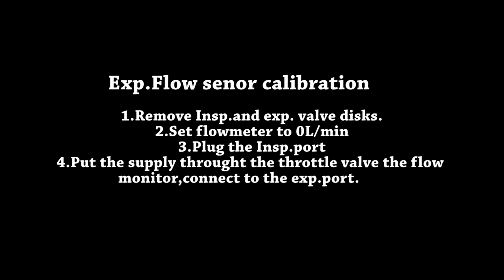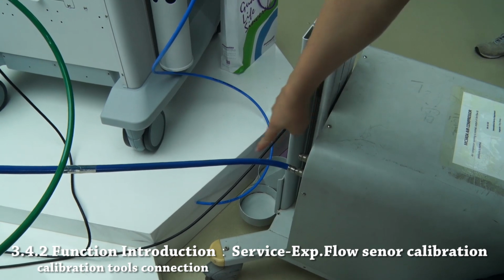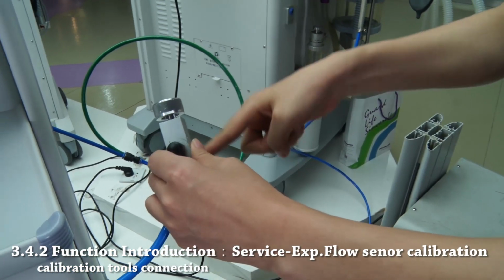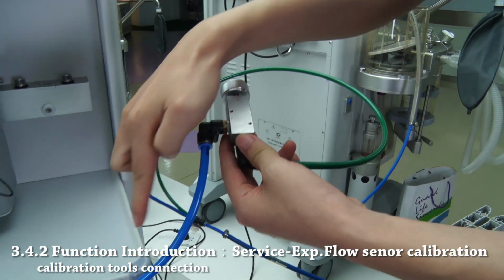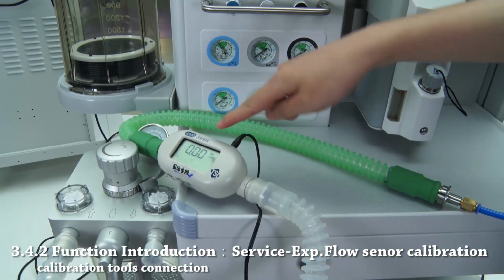Expiratory flow sensor calibration. This is step 4, and here we can see how the calibration tools are connected. This is a throttle valve. And this is the VT monitor.